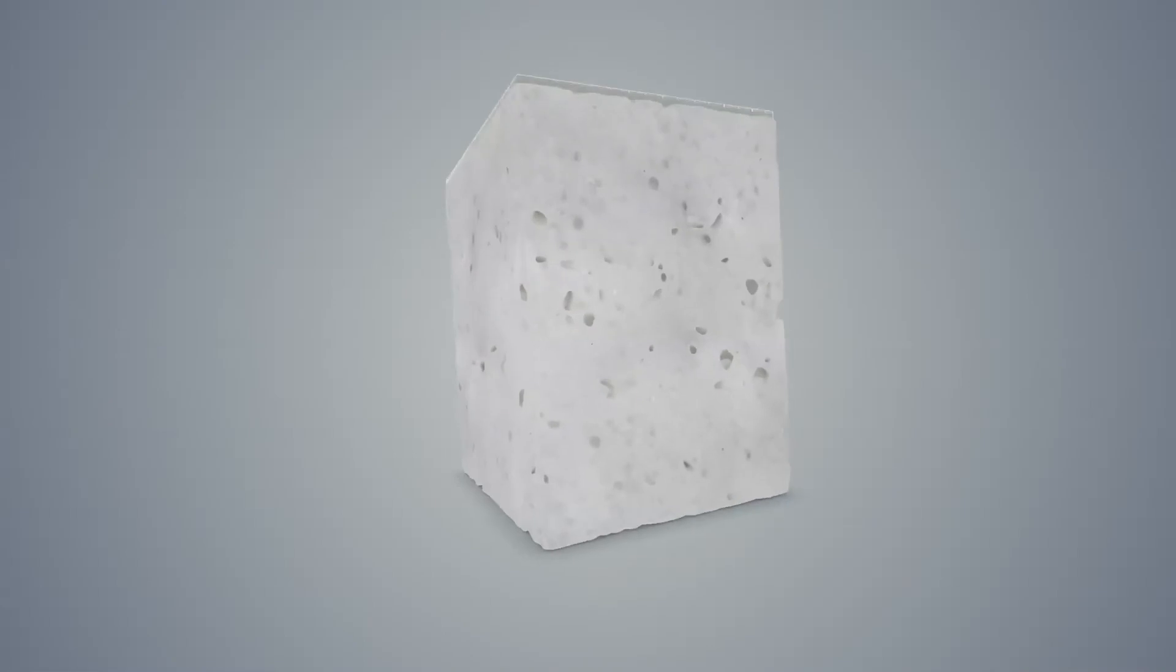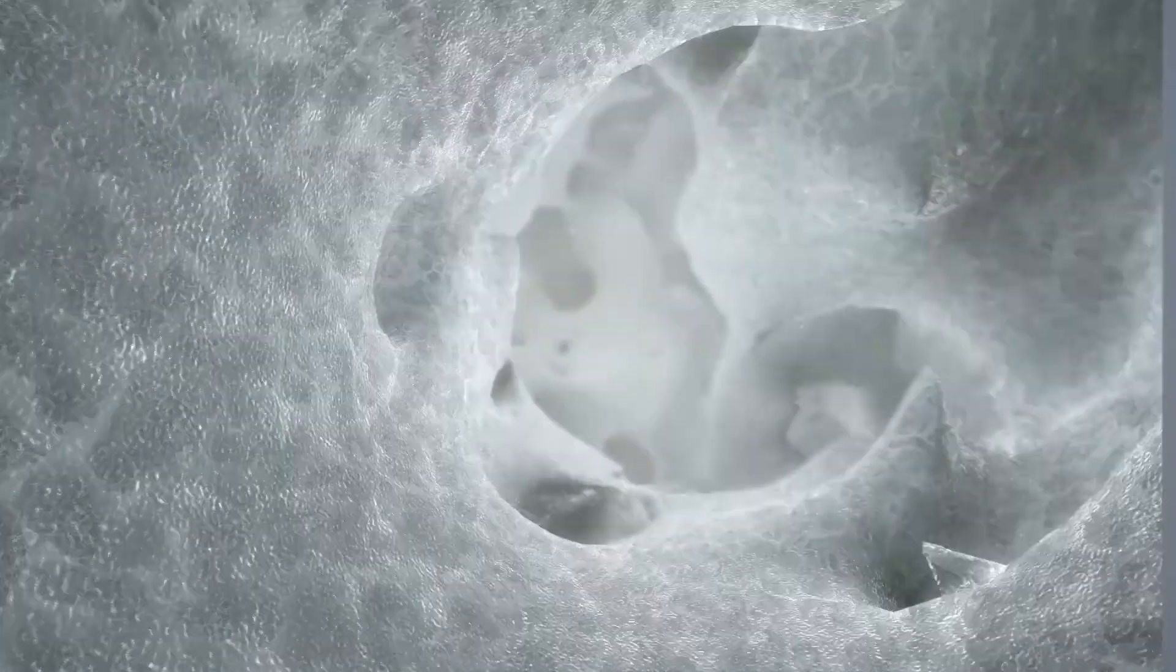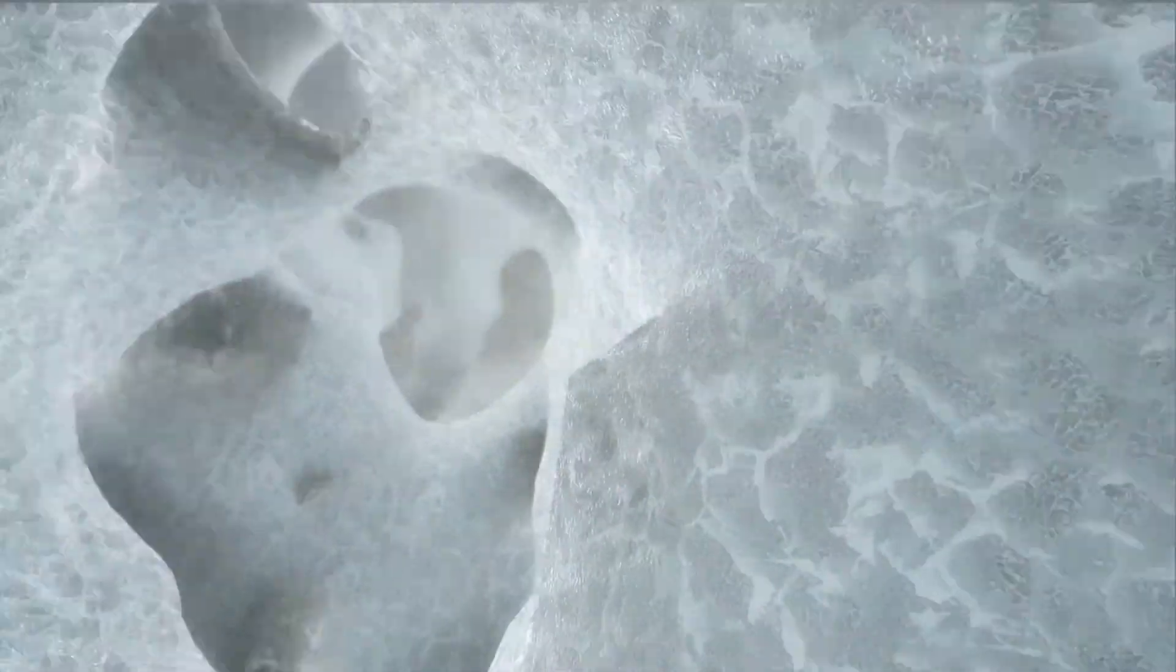The open cell foam creates a matrix of interconnected cells of varying sizes. This provides a structure for dermal cells to infiltrate, proliferate and vascularize as the Novosorb foam is slowly resorbed and hydrolyzed over an 18 month period.